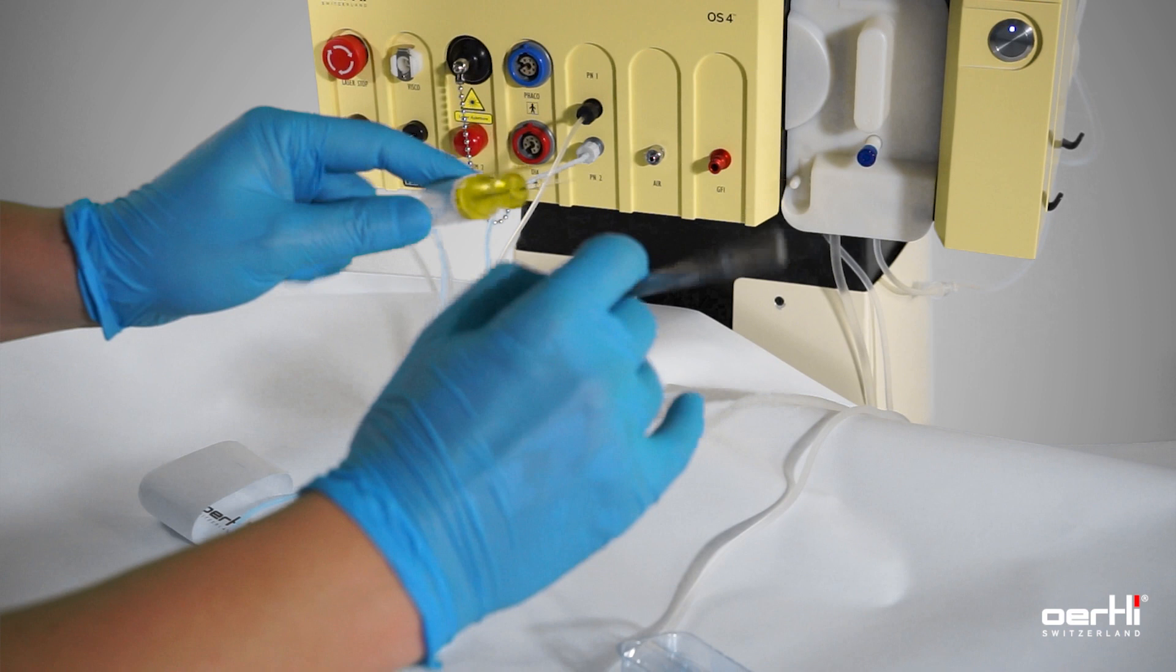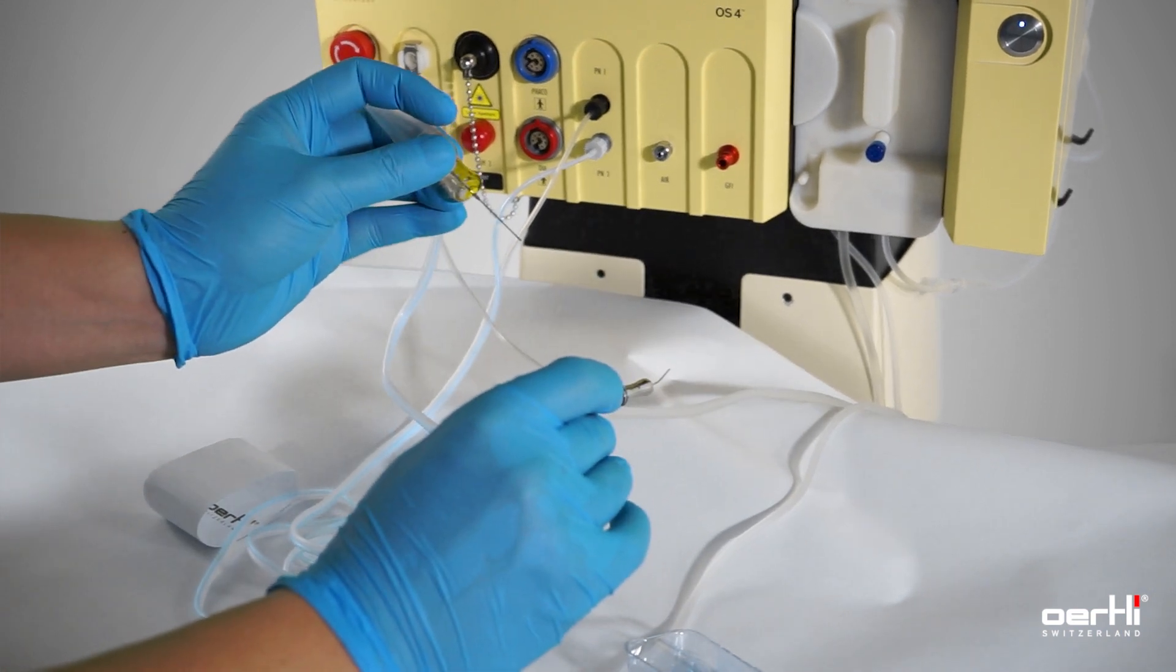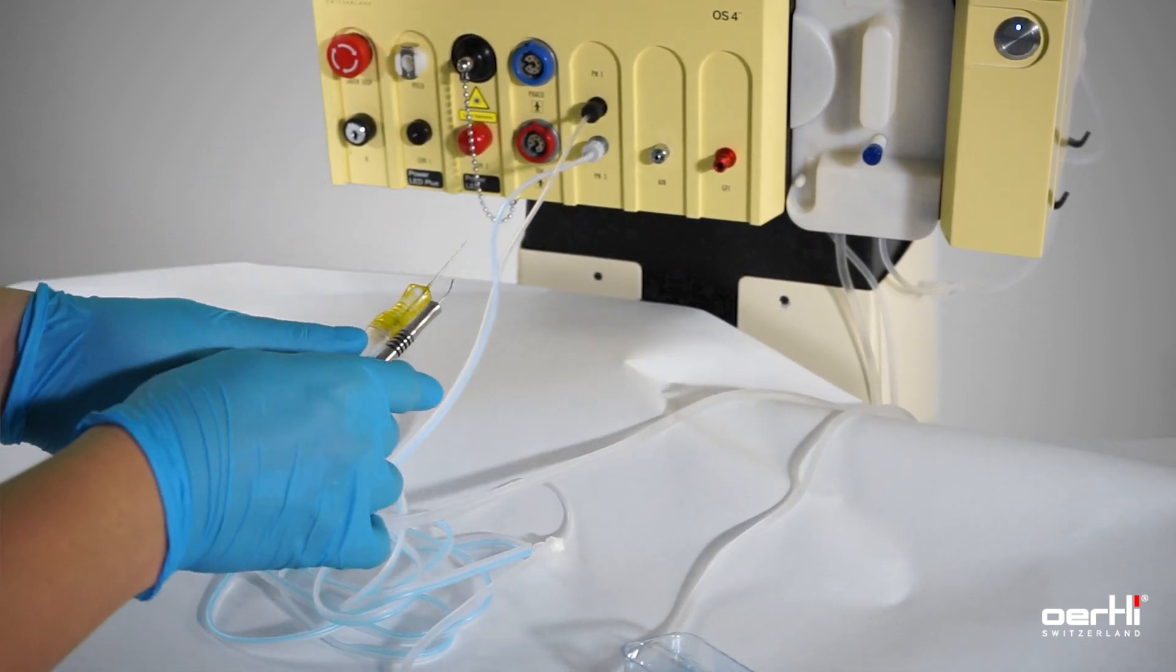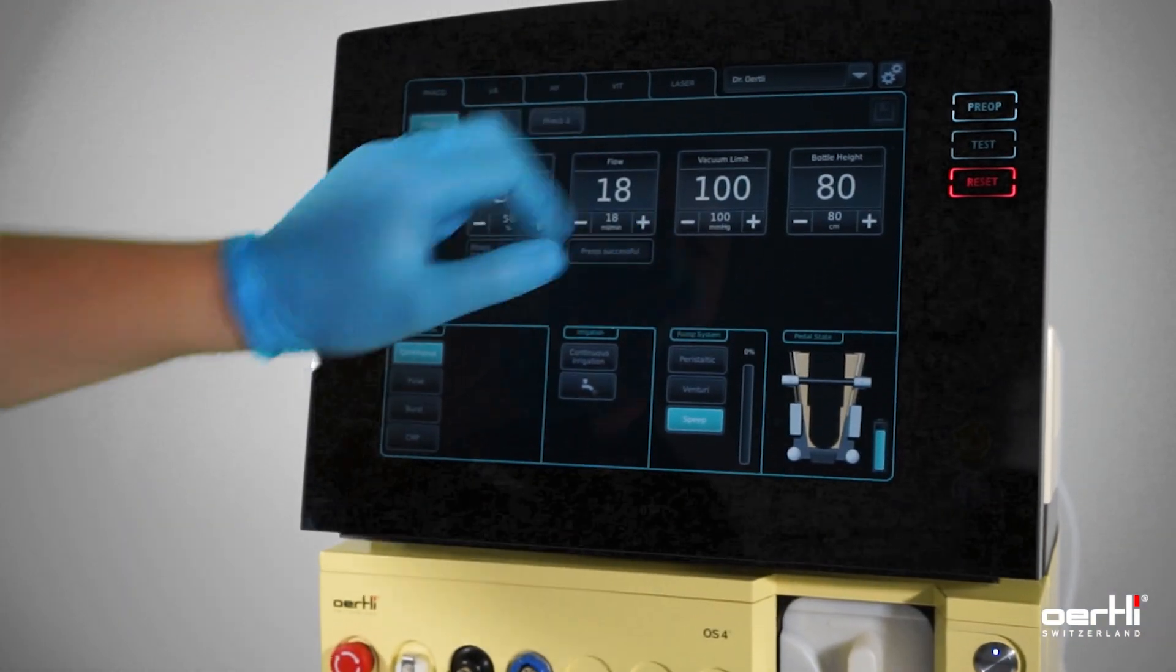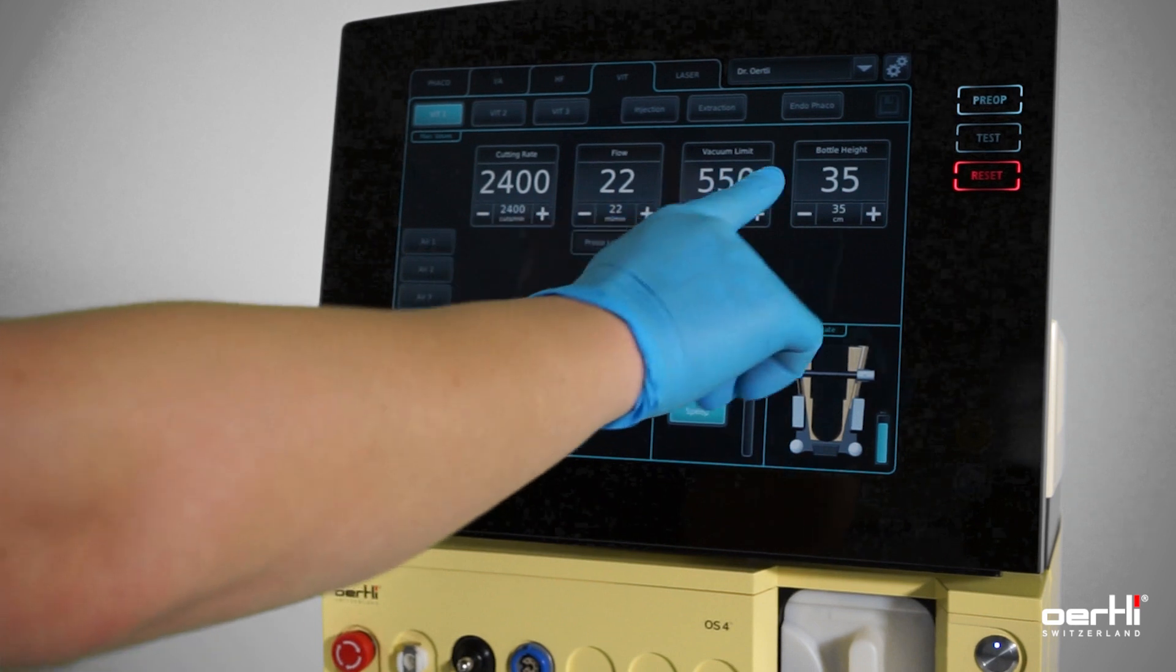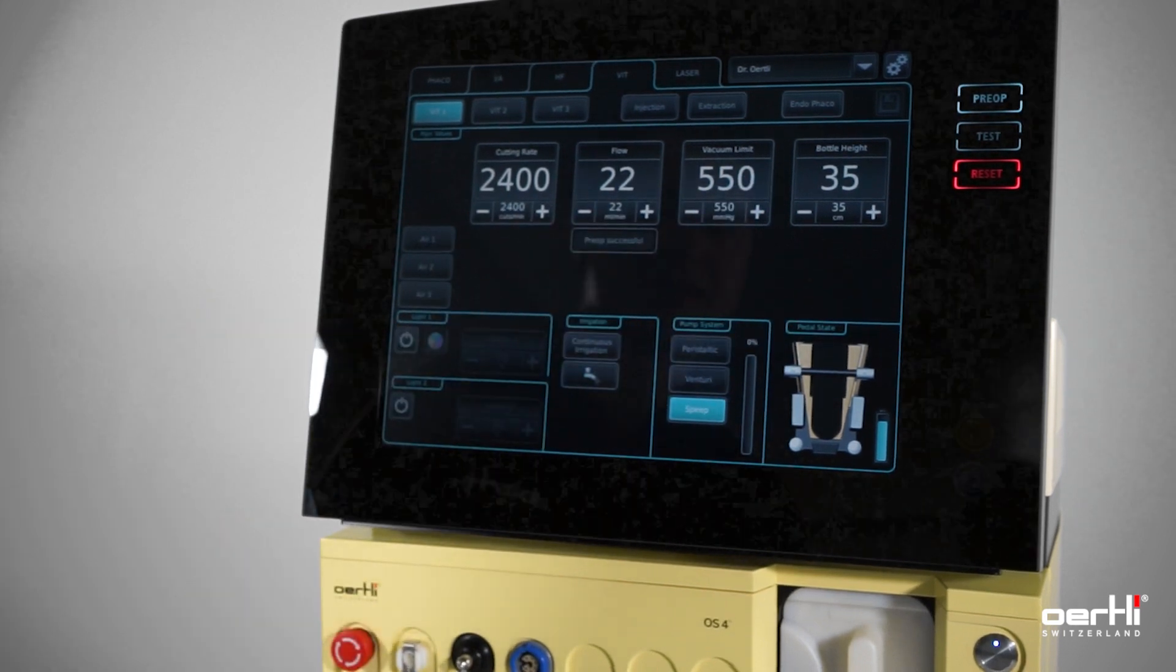This is the configuration for how you use the anterior vitrectomy. Finally, switch into the vitrectomy mode and ensure that you are running the anterior vitrectomy settings.